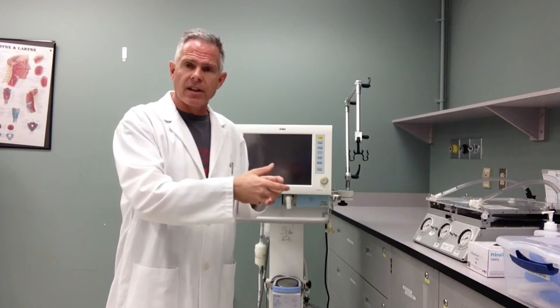Hi, my name is Alan Prost and I'm going to demonstrate how to attach a heated humidified circuit to the Draeger XL ventilator. This approach could apply to any type of ventilator — it's a little bit unique to the Evita, but it could basically be applied to any ventilator. The idea is to attach the circuit safely and cleanly and get it ready for patient use.